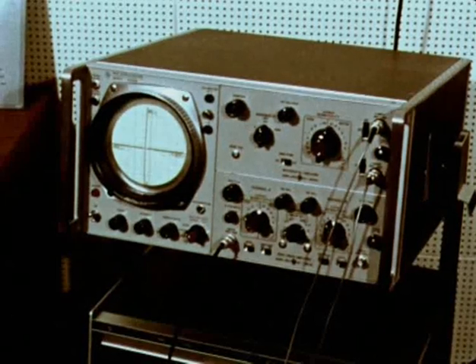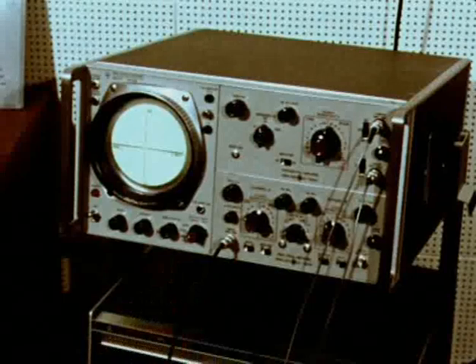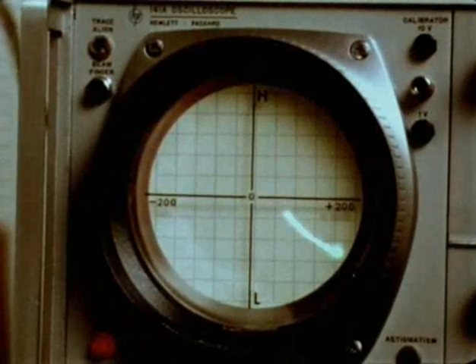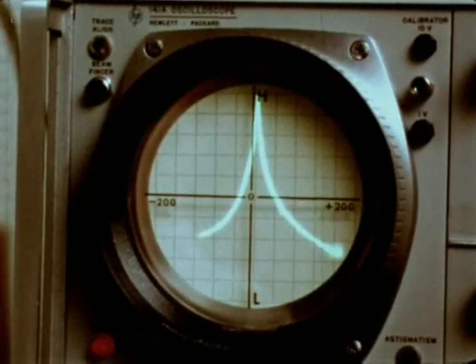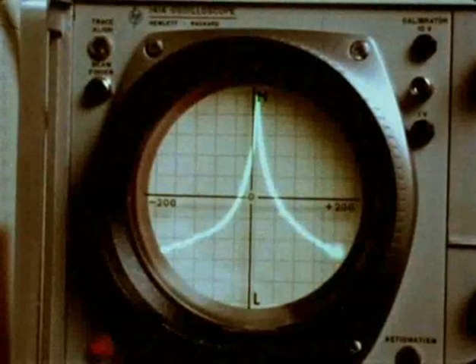The pressure scale is on the horizontal axis and the compliance scale on the vertical axis. When the membrane is clamped, the compliance is low. As the pressure is lowered, the compliance increases quite sharply and then begins to fall again as the pressure is decreased below that of the middle ear. The point of maximum compliance is clearly seen and in a normal patient is at 0 millimeters of water.